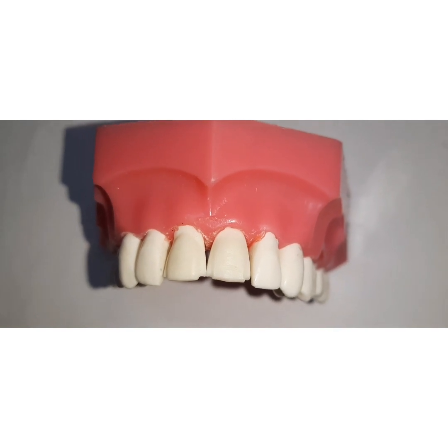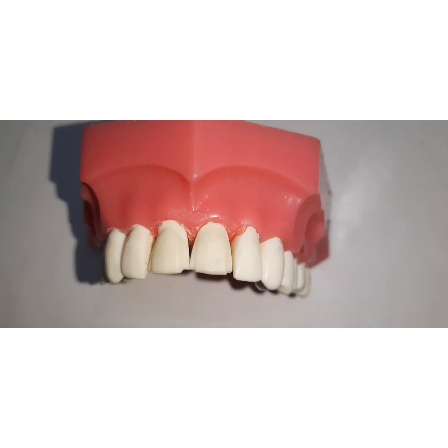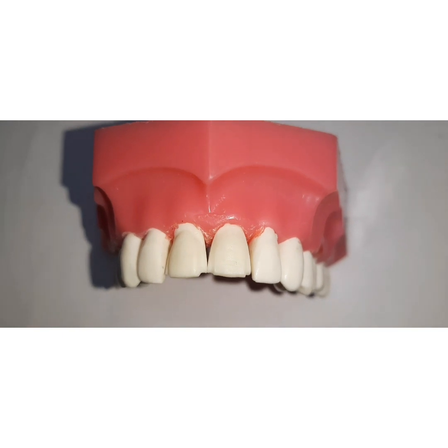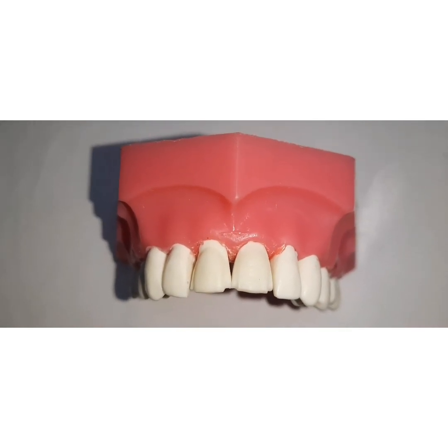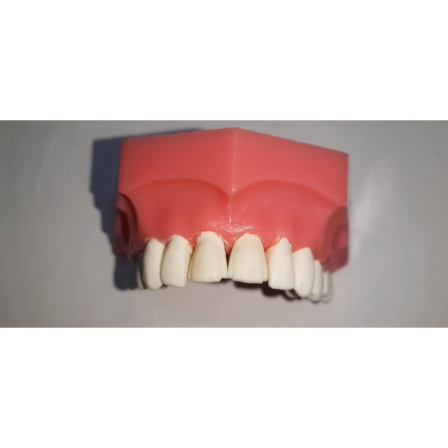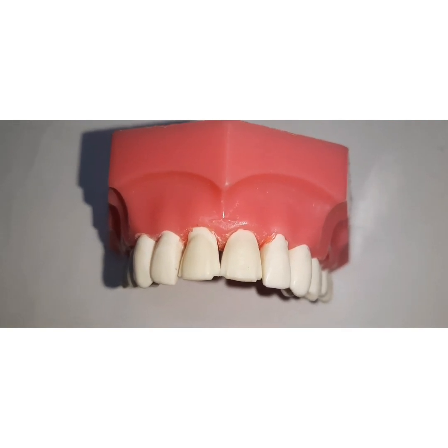Further evolution came with glazed ceramic. With the introduction of ceramic combined with bonding agents and resins, porcelain veneers offered improved color stability, abrasion resistance, and were well tolerated by the gingiva. This is where porcelain laminate veneers became the preferred method for correcting discolored teeth. Additionally, etching the internal surface of ceramic veneers with hydrofluoric acid was introduced to improve bond strength between the luting agent and the veneer. Incorporating silane coupling agents also showed improvement in shear bond strength, and these materials were then extensively used in bonding porcelain veneers.